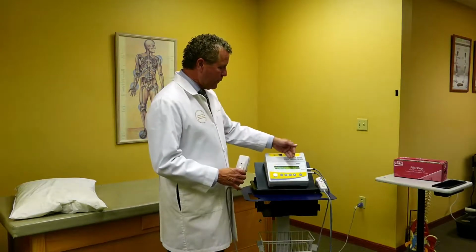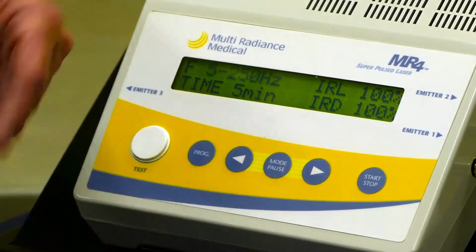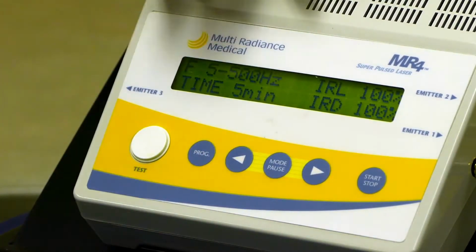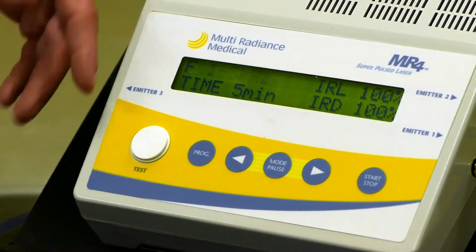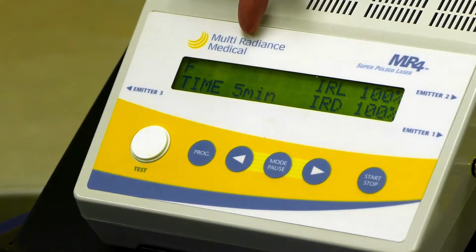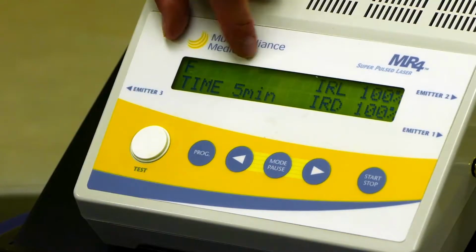Since the frequency sweeps are in here now, you can go 5 to 50, 5 to 250, 5 to 500, or we start moving to the upper branches of 500 to 1,000 or 1,000 to 3,000 K, and K means 1,000, it's abbreviated.